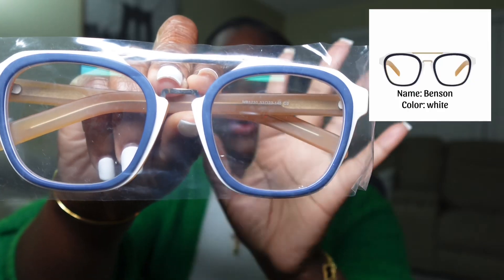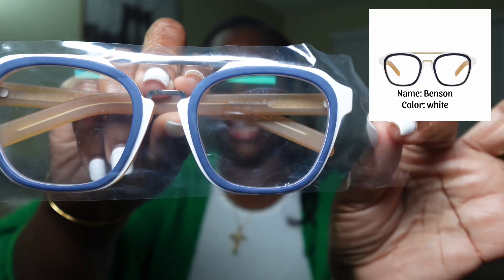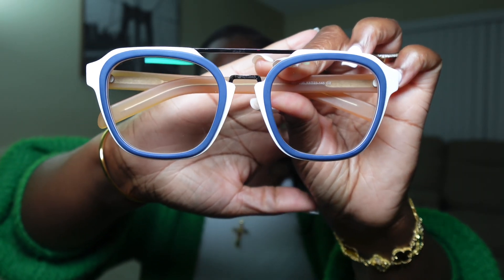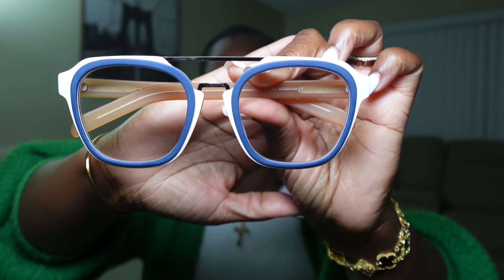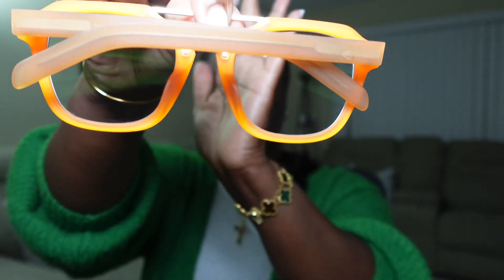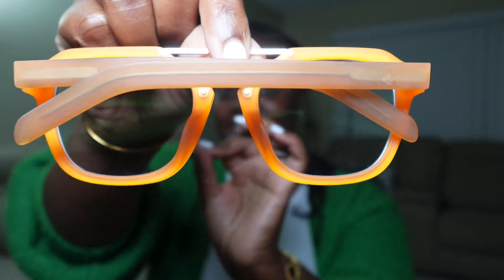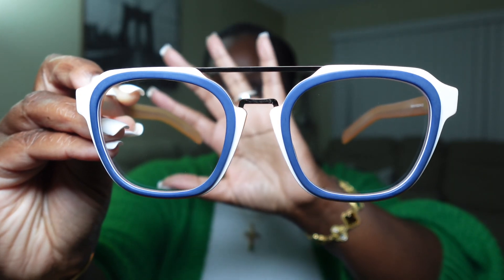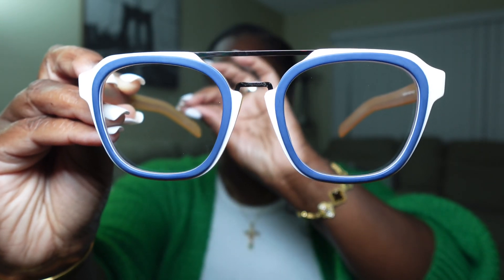There's another cleaning cloth for your glasses inside, and the glasses are in this bag right here. They came with plastic on it, so you just take it off. This is the glasses — you can see it's very cute. I love the color, and the back right here is very nice, very demure. Love it.